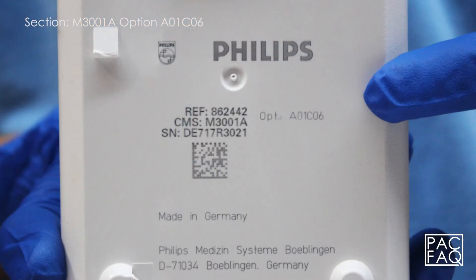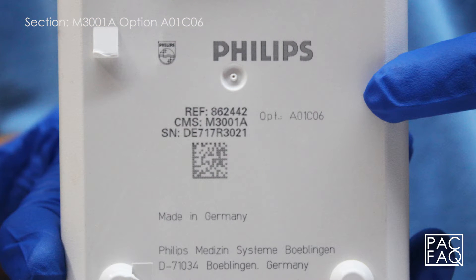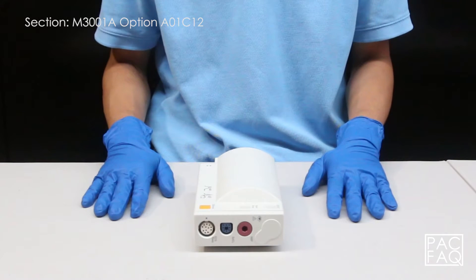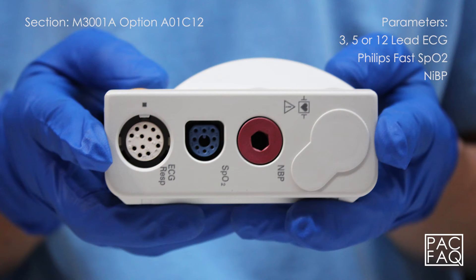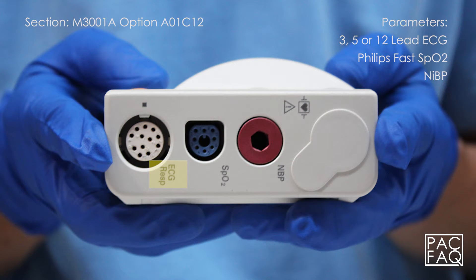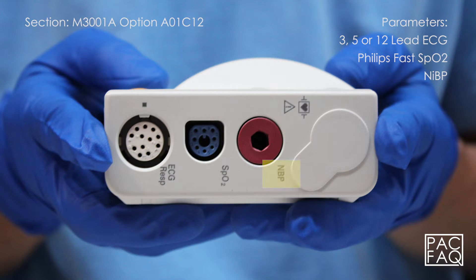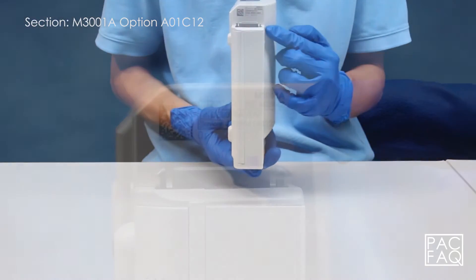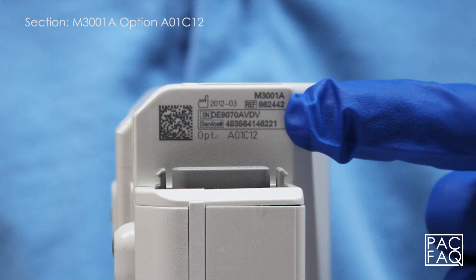Here we have option A01 C12. This unit comes with parameters 3, 5, or 12 lead ECG, Philips fast SPO2, and non-invasive blood pressure. The product identification and serial numbers are located on the corner back side of the unit.